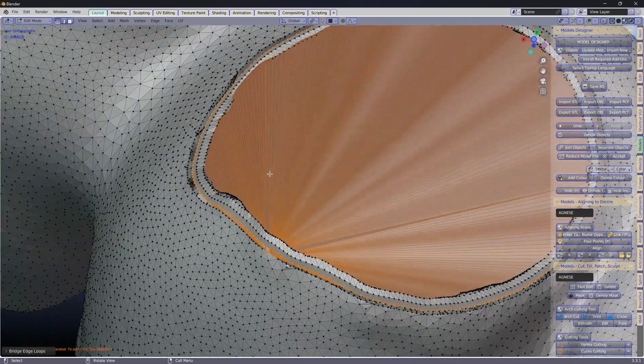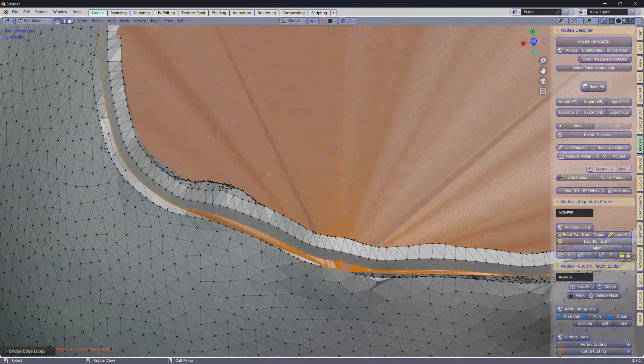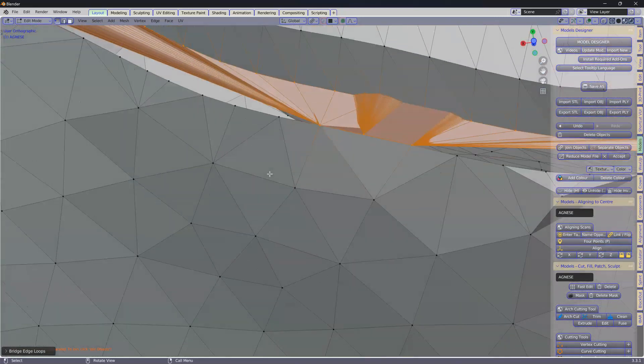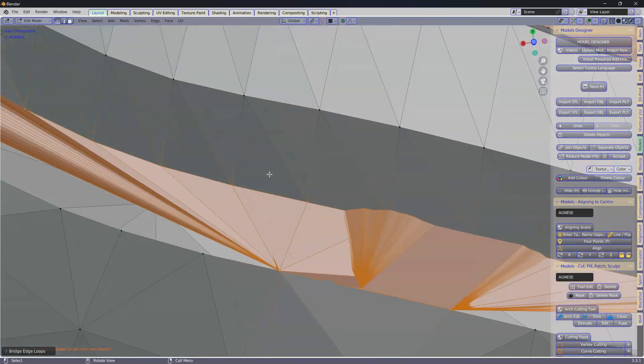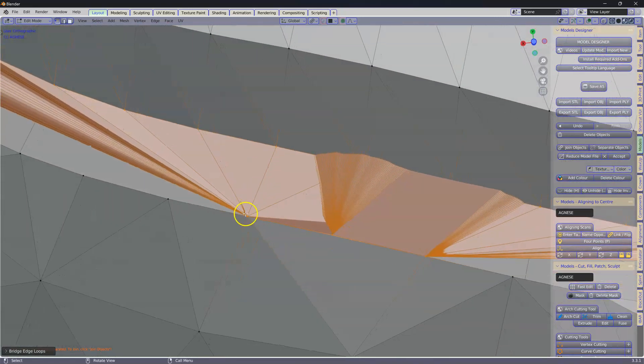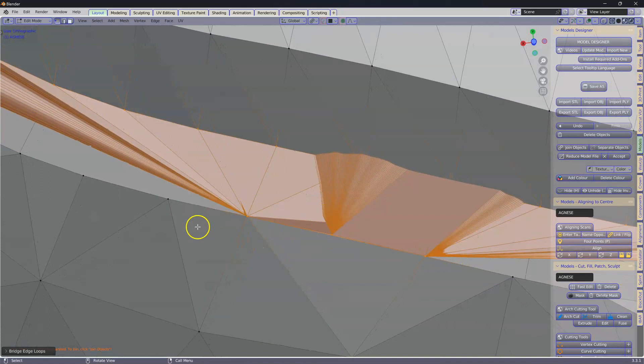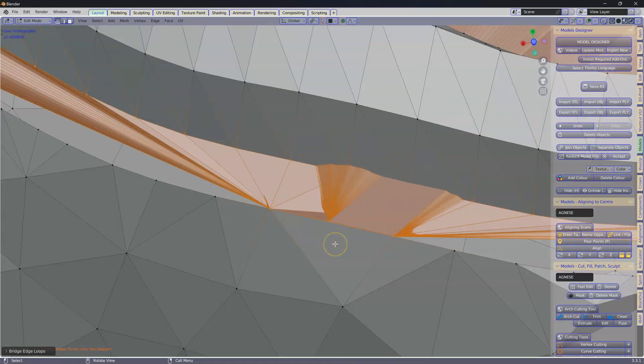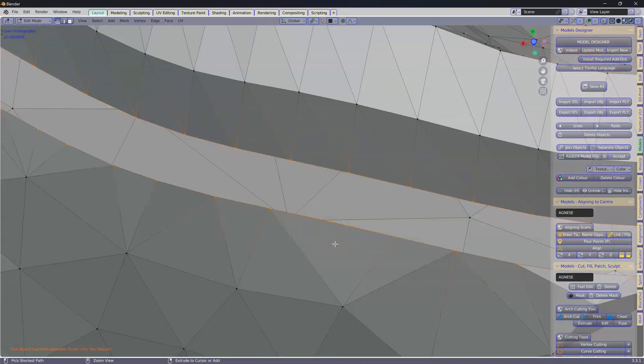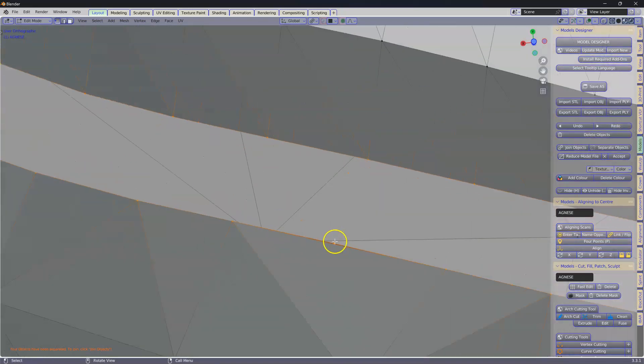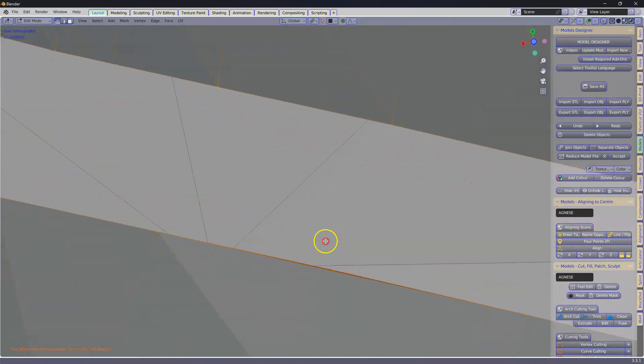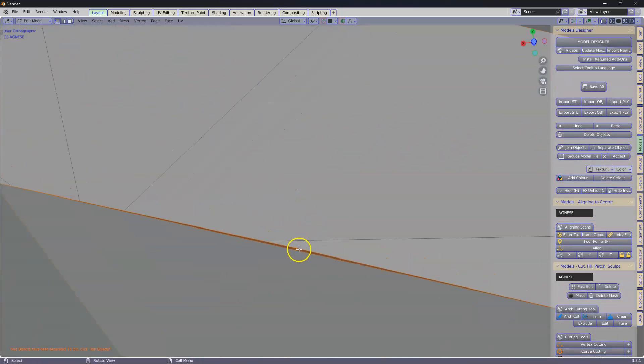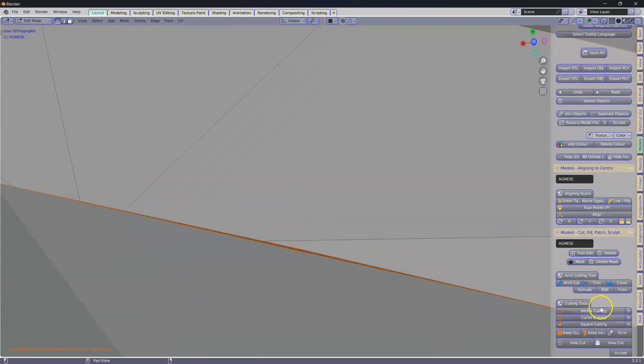Now this is because of these vertices here. There's something wrong here, especially this little point over here. So we're going to go back. Ctrl Z. And if you look closely, I think this is an inverted normal.